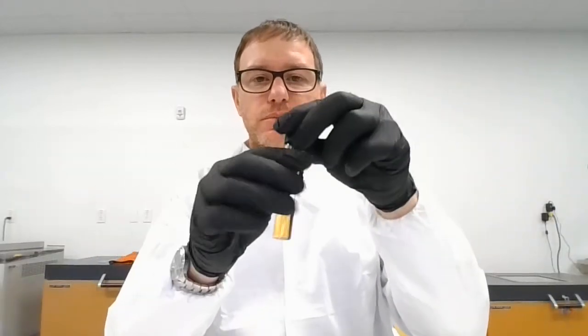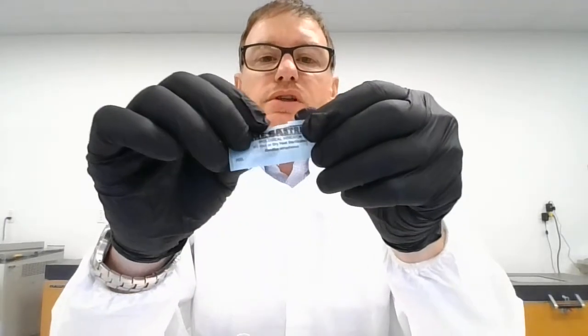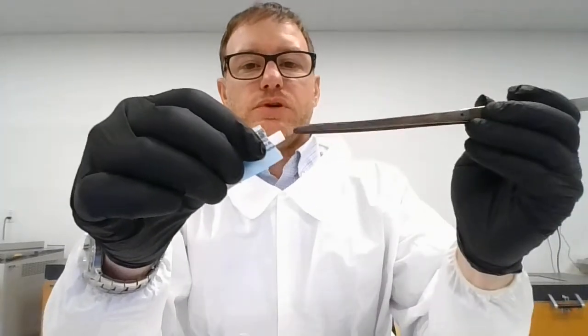One last time we have our media and our strip. Small tear to start in the glassine, then pull down and away at the same time to reveal the strip. Use sterile forceps to put the strip into the media. And that's the tear method for opening glassine.